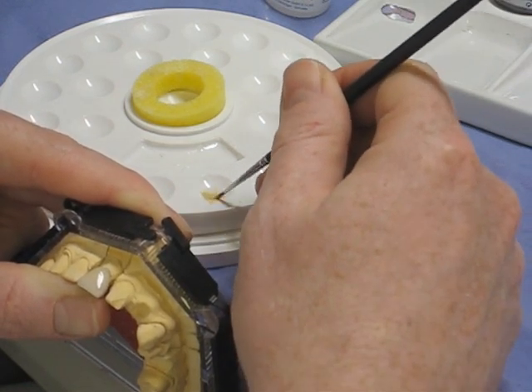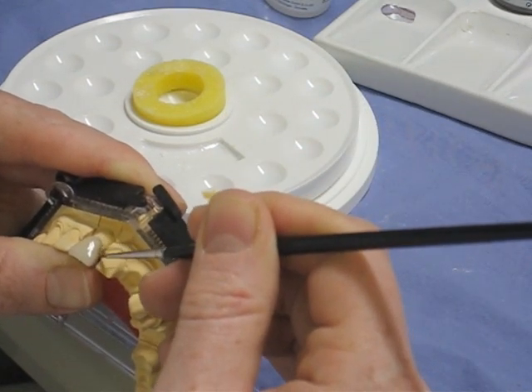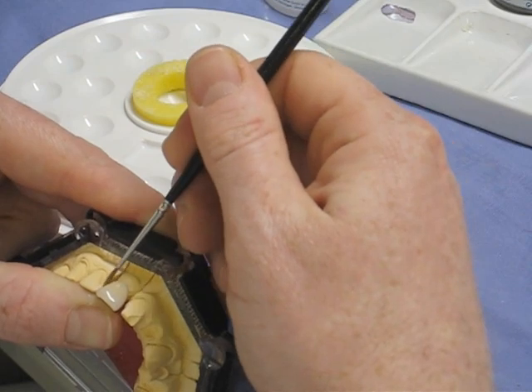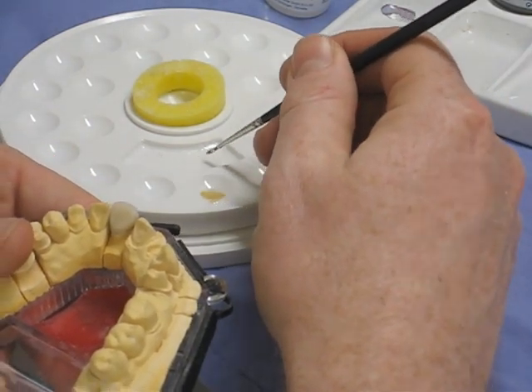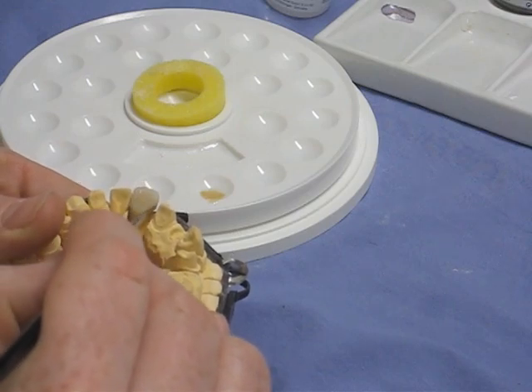You're just putting the stains on into the glaze as it's wet on the crown — you sort of puddle it in, slosh them about a bit. It's easy to overdo these stains, so you want to be quite careful. They're not overly visible in the glaze; you sort of paint it on and you have to trust that you've put it there. It's easier if you're doing a self-glaze — you can see them more clearly. I'm just putting some on the back, just for a little bit of character there.